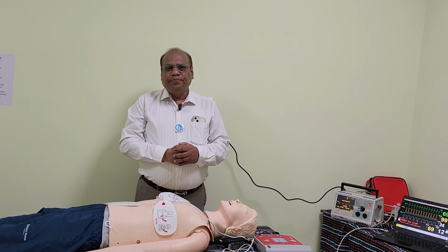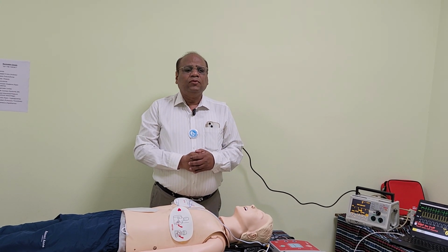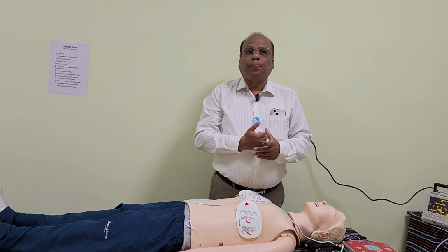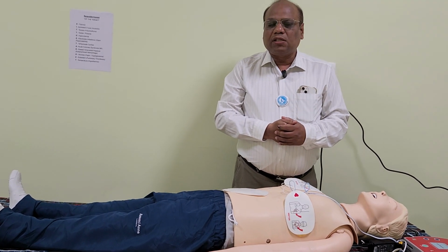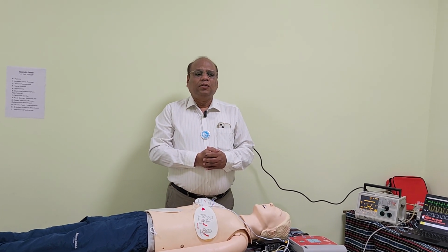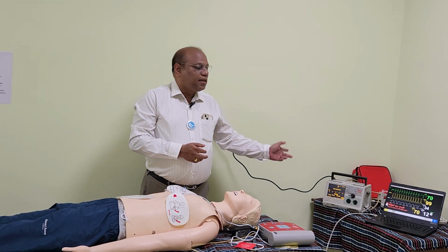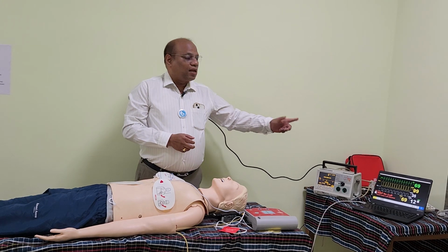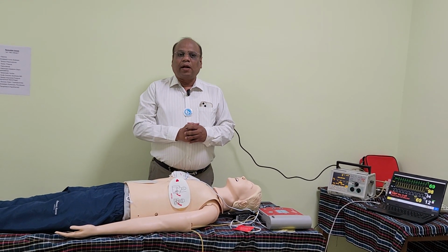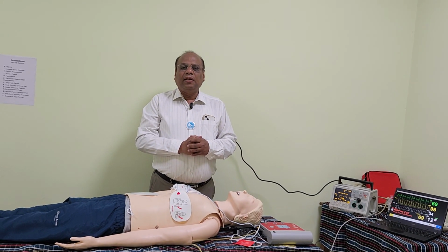Thank you. So to confirm the mechanical capture, where does he have to palpate? The student is expected to palpate a peripheral pulse like femoral pulse or brachial pulse. After palpating the femoral pulse, the student should confirm that the pacing rate that is set, the electrical capture shown on the monitor, and the pulse felt on the femoral artery are all the same number. Then we can say that everything is in coherence.